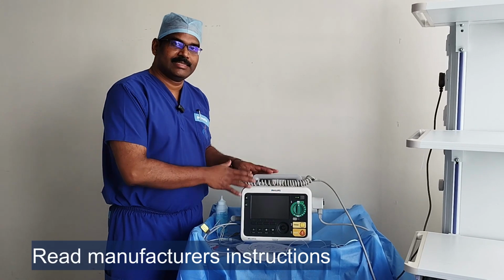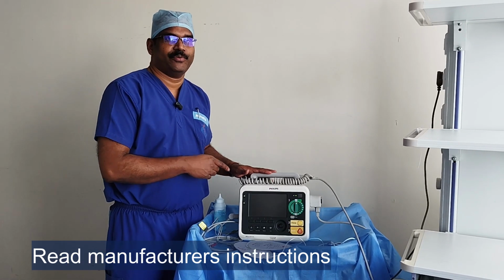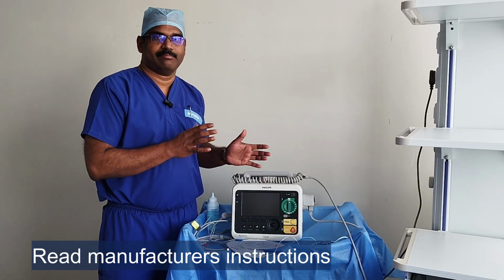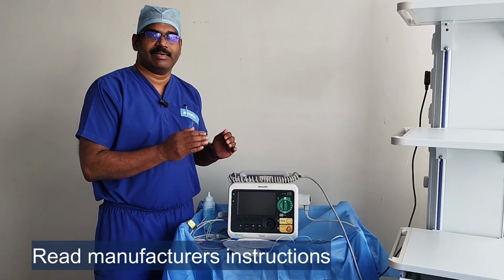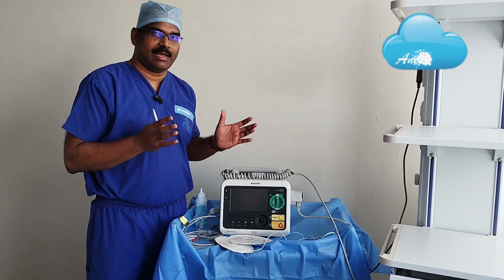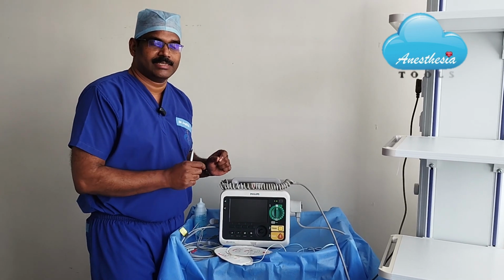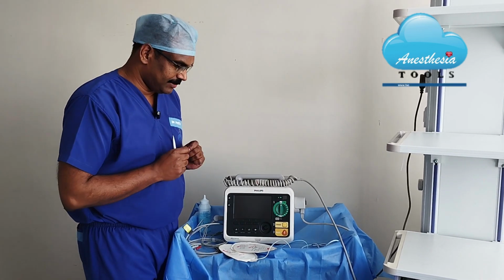Anytime you need to use this equipment, it is always advisable to know your machine before using it, because each manufacturer might have given different settings, but generally most of the things are common, and it is very important to know the basic functions of external defibrillator.